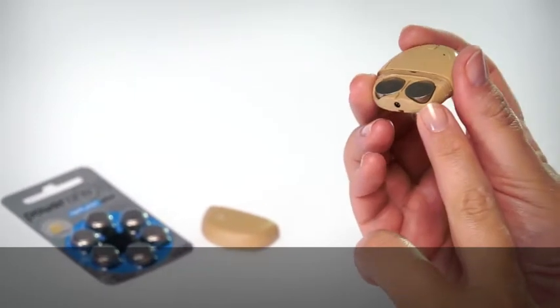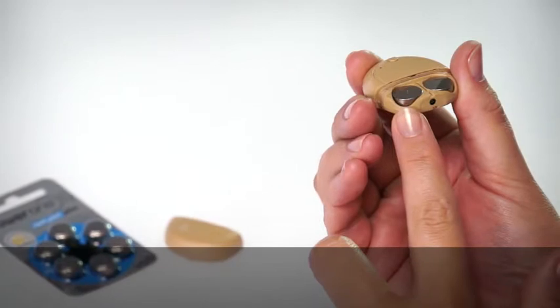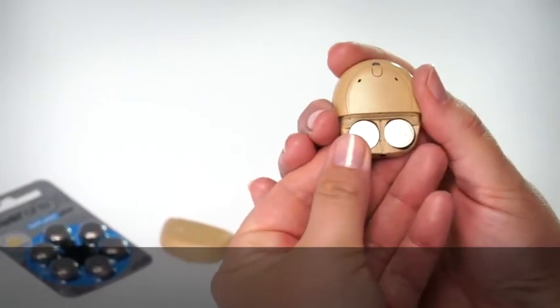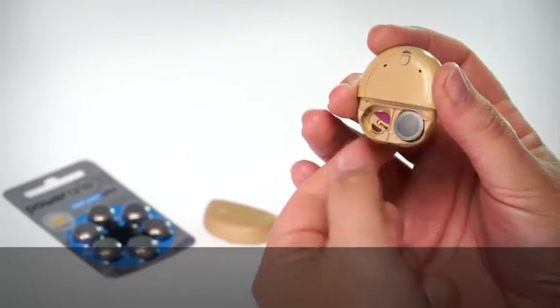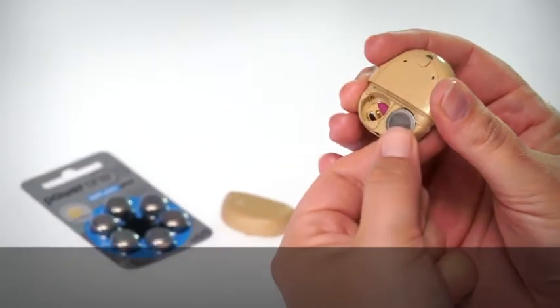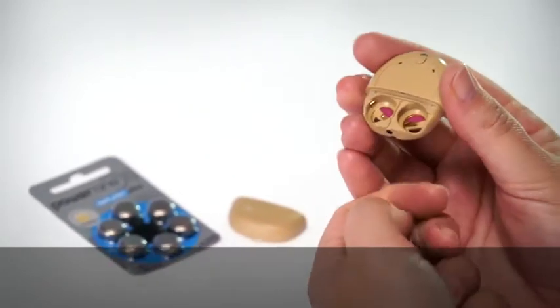The battery holder has two cut-out sections to help you remove the batteries. Push down on each battery with your thumb. The batteries will pop up. Pull the batteries out and dispose of them appropriately.